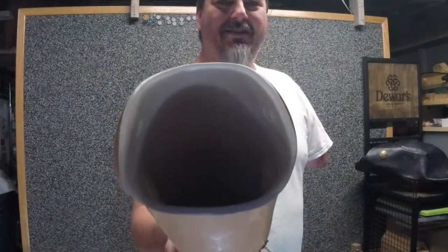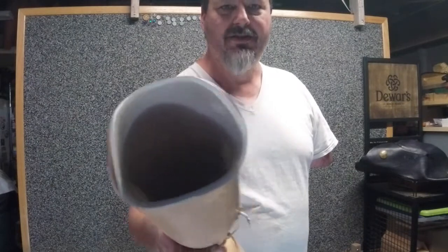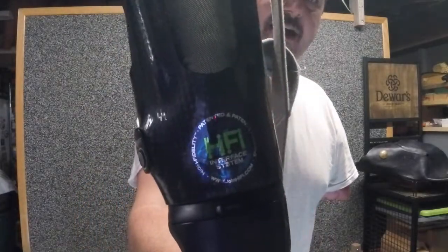Inside you can see this is an older style, a little bit different shape — it's a little bit flatter and has two circuits in it. This is a dynamic arm, but the socket was a little loose for my electric arm. What I need is something a lot tighter. So I went to Bio Designs and this is their hi-fi socket. The high fidelity socket squeezes in around your arm and makes everything really tight without sacrificing comfort. With that, I get great control of my electric arm.